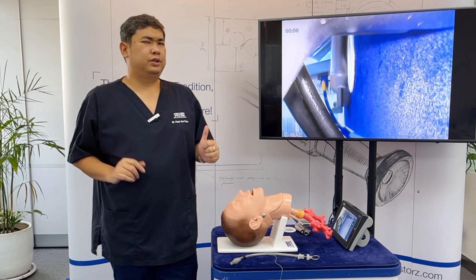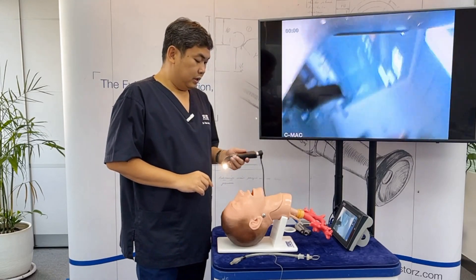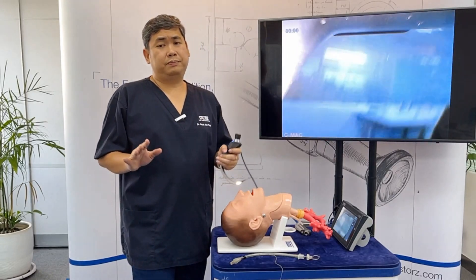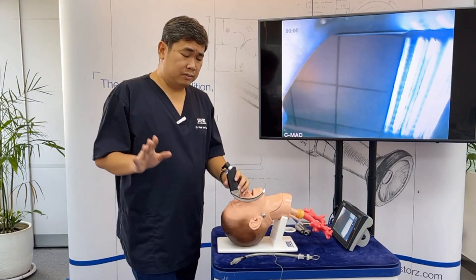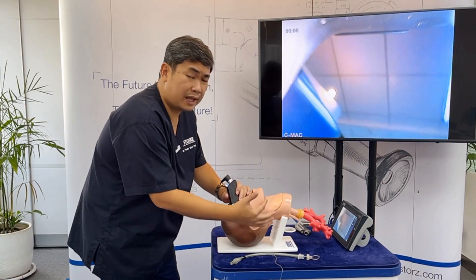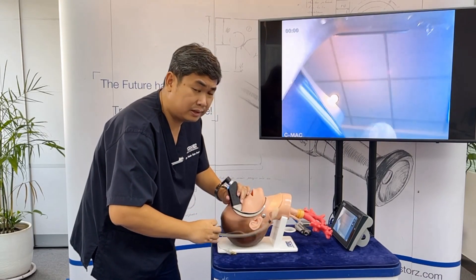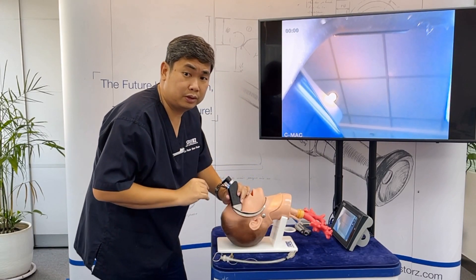A major concern when using video laryngoscopy is with hyper-angulated blades. The problem is that sometimes you can see the vocal cords but cannot intubate — this is where the phrase 'seeing is not intubating' comes from. Illustrate to participants why this occurs: with a hyper-angulated blade, the approach of the ET tube points toward the anterior wall while the trachea is going down, and that's where the difficulty arises.